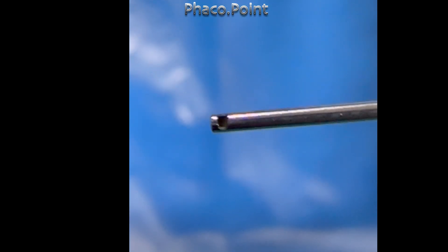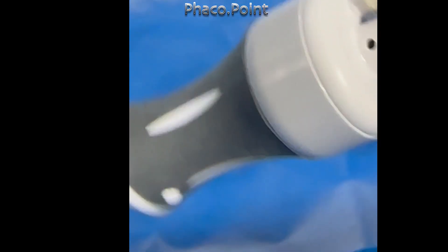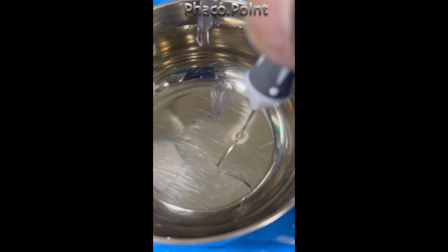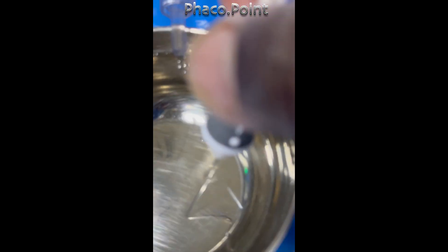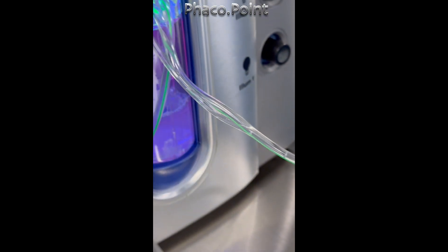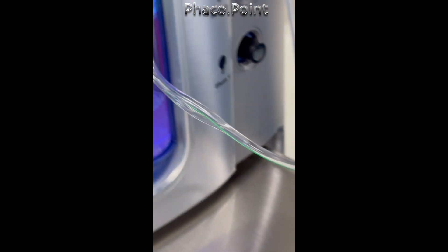You also find that when I activate vitrectomy, the inner tube is not moving at all, while the instrument is moving in a staccato fashion. The aspiration line is working fine because when I go into aspiration, you can see that there is aspiration happening in the aspiration line as well.